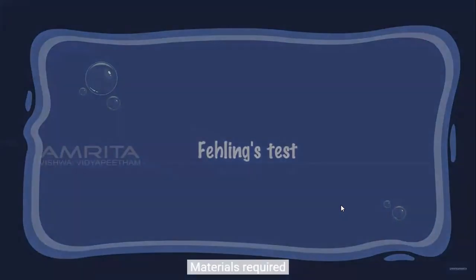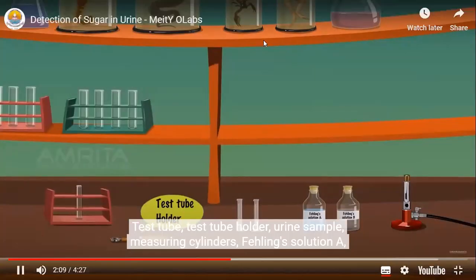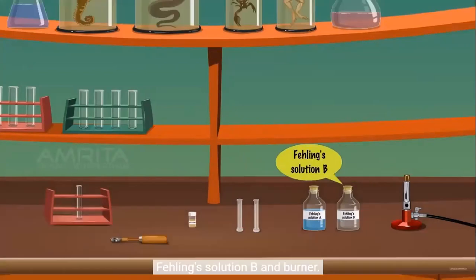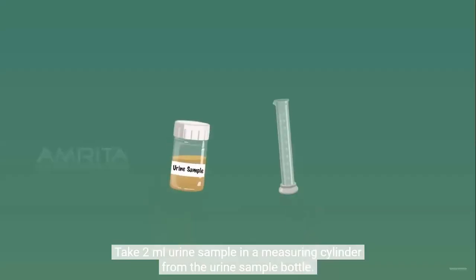Fehling's test. Materials required: test tube holder, urine sample, measuring cylinders, Fehling's solution A, Fehling's solution B, and burner. Procedure: take 2 ml urine sample in a measuring cylinder from the urine sample bottle.